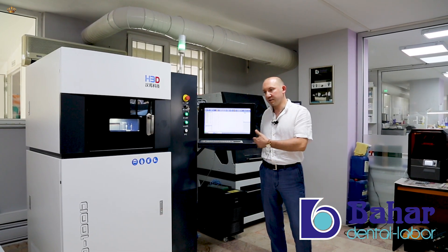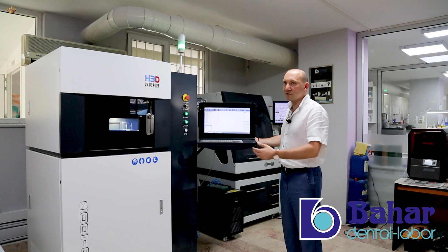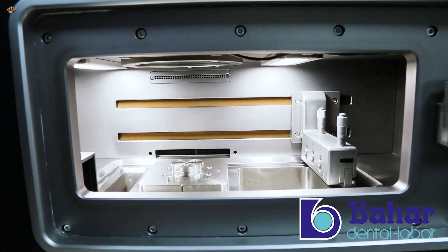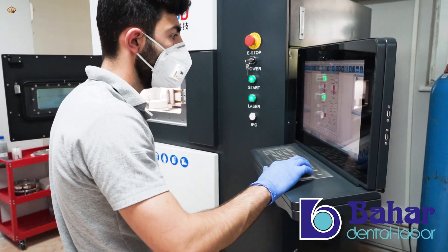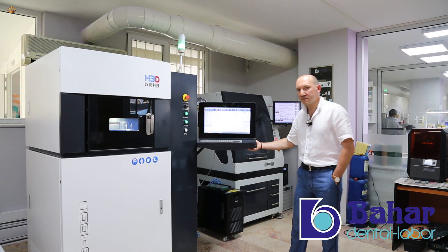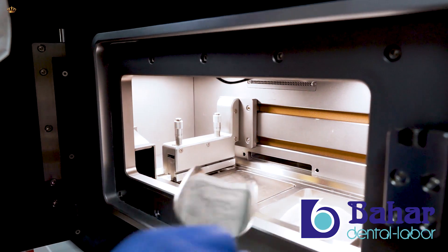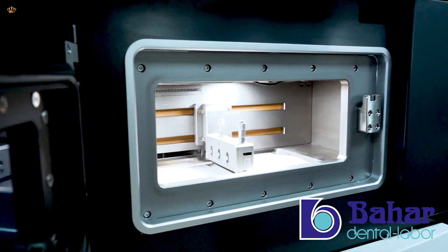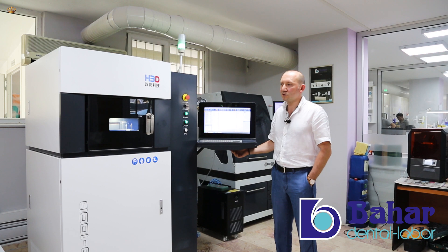Our metal frameworks that have been designed in STL format in the digital environment are obtained from chrome cobalt powders in our 3D metal laser sintering machines. This machine, as of 2019 in Turkey, is only in our laboratory and a few others. The metal frameworks created by these machines are the assurance for a flawless final result.